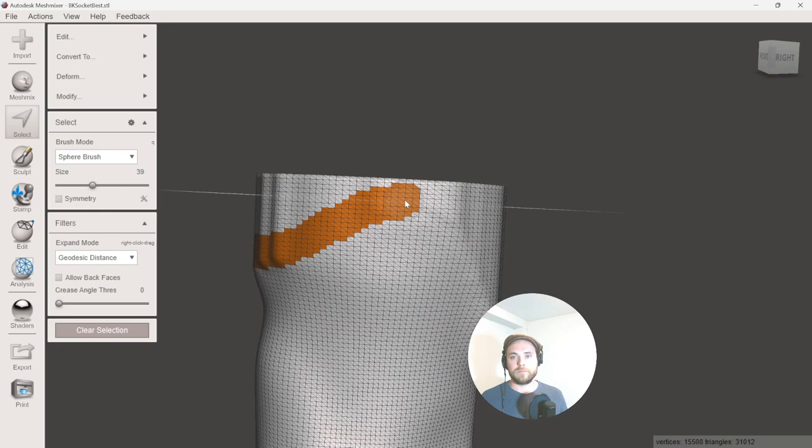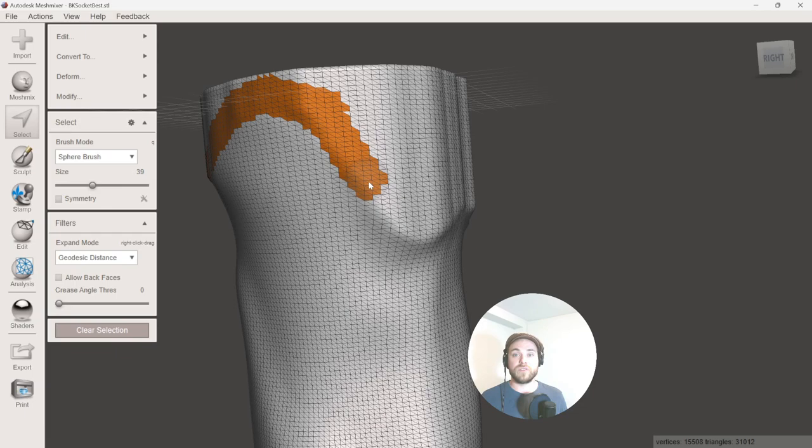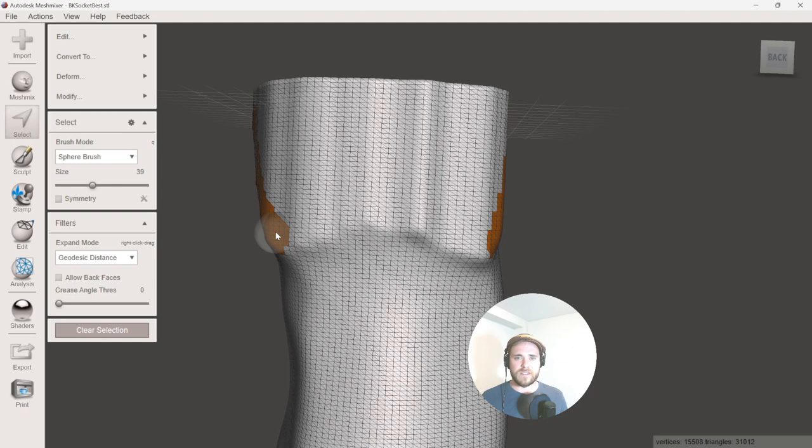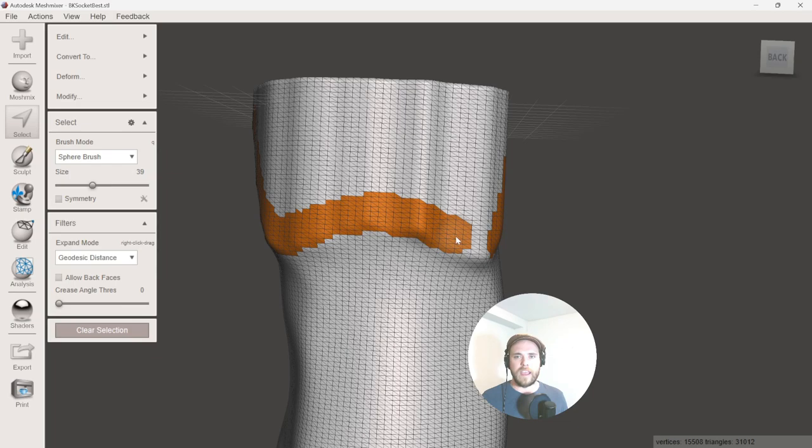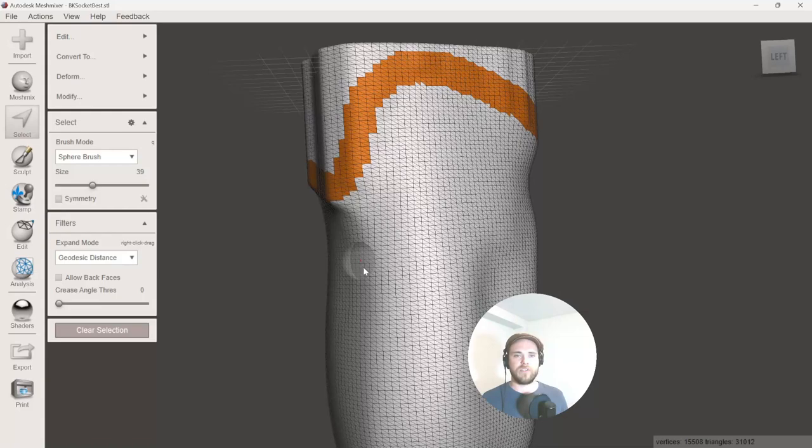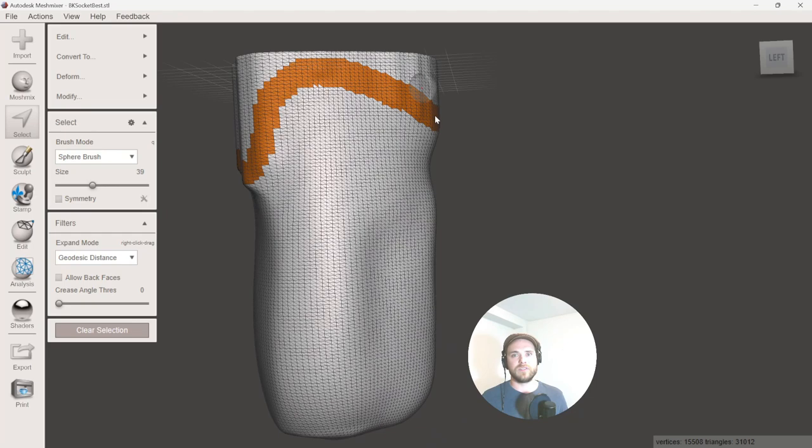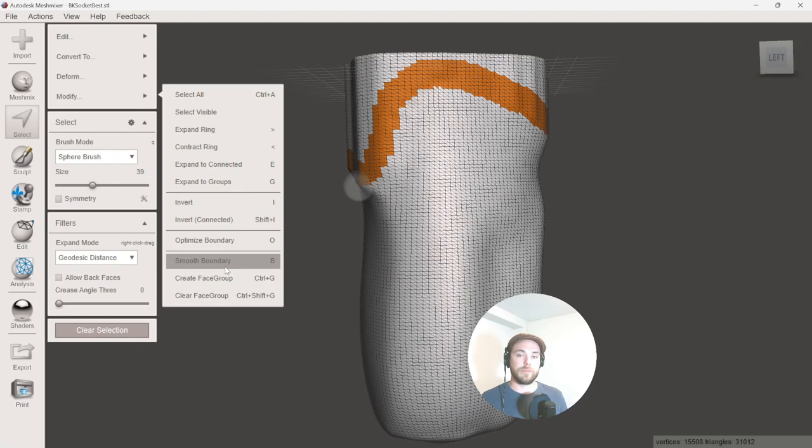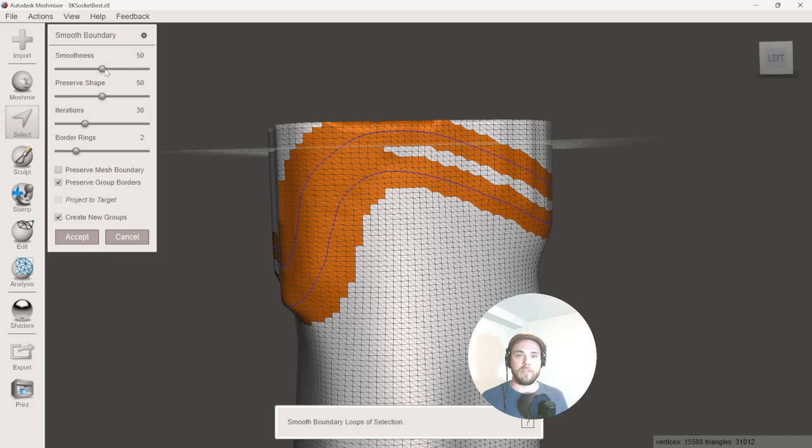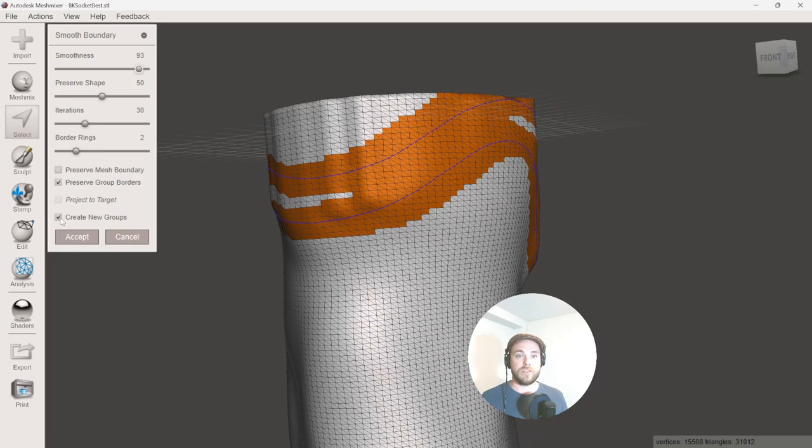So you could try and do this inside of Fusion. Fusion does have the ability for you to select and delete geometry just like this. But the one thing Fusion doesn't have, which prevents you from actually doing this, is that you can't smooth the boundary after you cut it. So that jaggedness carries through even when we do the quad remeshing, which is kind of ridiculous considering it's such a small feature. Fusion should be able to add a smoothing boundary command just like they have inside of this program. So hitting B on our keyboard next, we're going to be able to take that selection and smooth the boundary. So I'm going to create a high level of smoothness and just make sure that I get those two nice lines and we're going to create a new group as a result of this and hit accept.